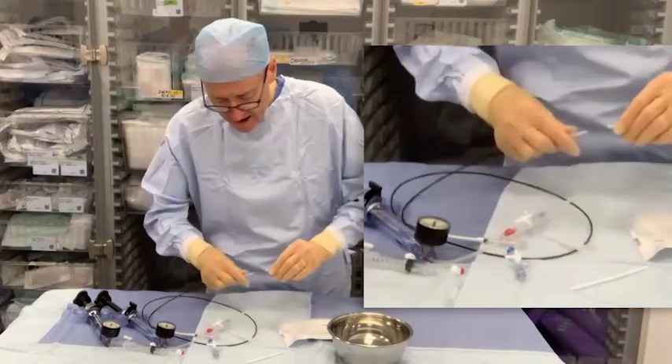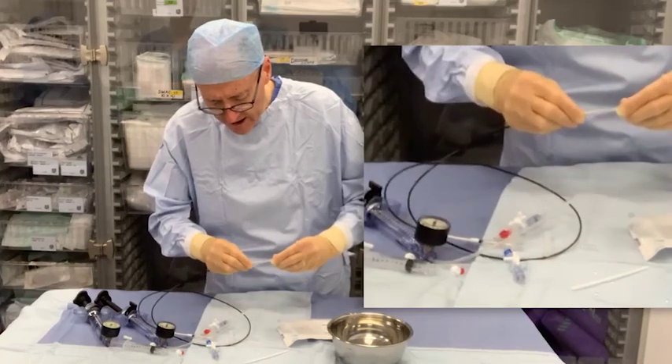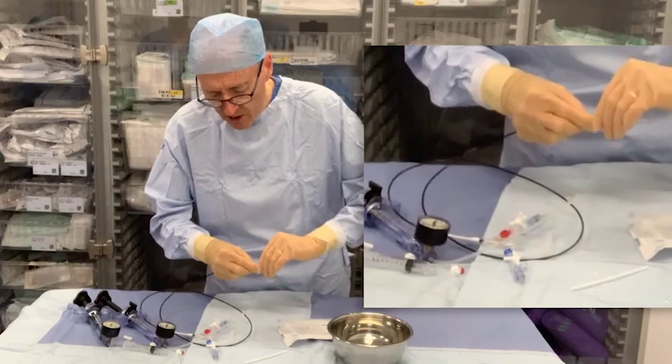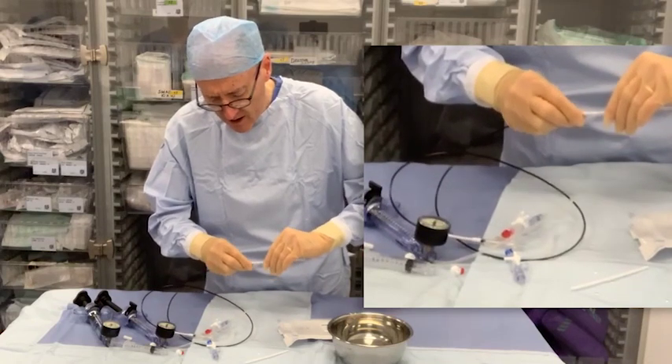That hollow tube can be useful to get the stent on the balloon. You can sometimes push the balloon inside a bit and that allows you to get over the edges of the balloon. This balloon we've already done a positive prep on and we're just putting it on top.